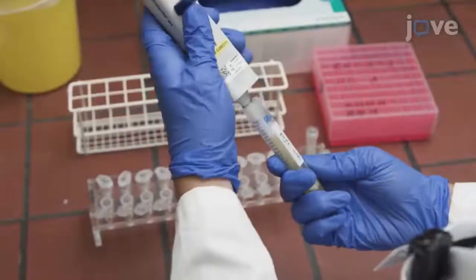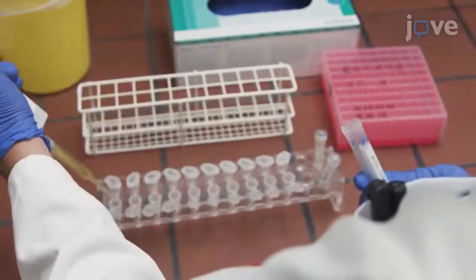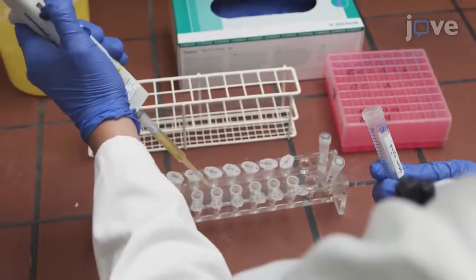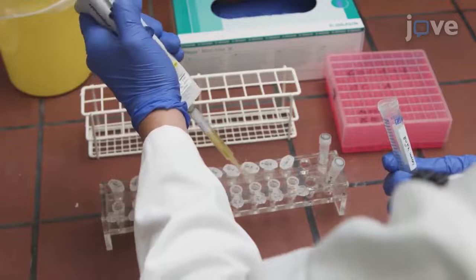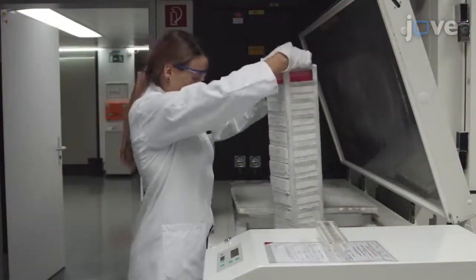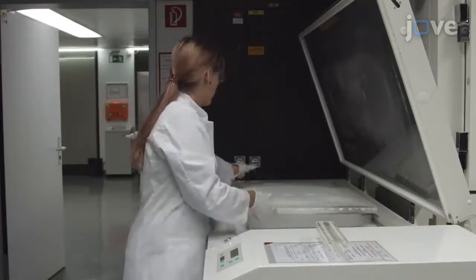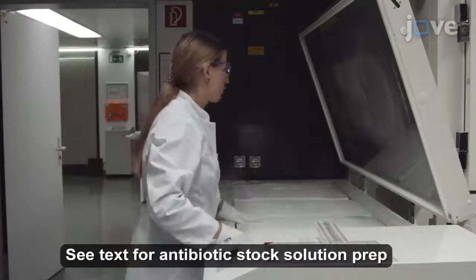Use a repetitive pipette to generate 100-microliter aliquots of the calibrators and quality controls in 1.5-milliliter polypropylene tubes. Store the calibrators, quality controls, and previously prepared antibiotic stock solutions at minus 80 degrees Celsius for up to 6 months.